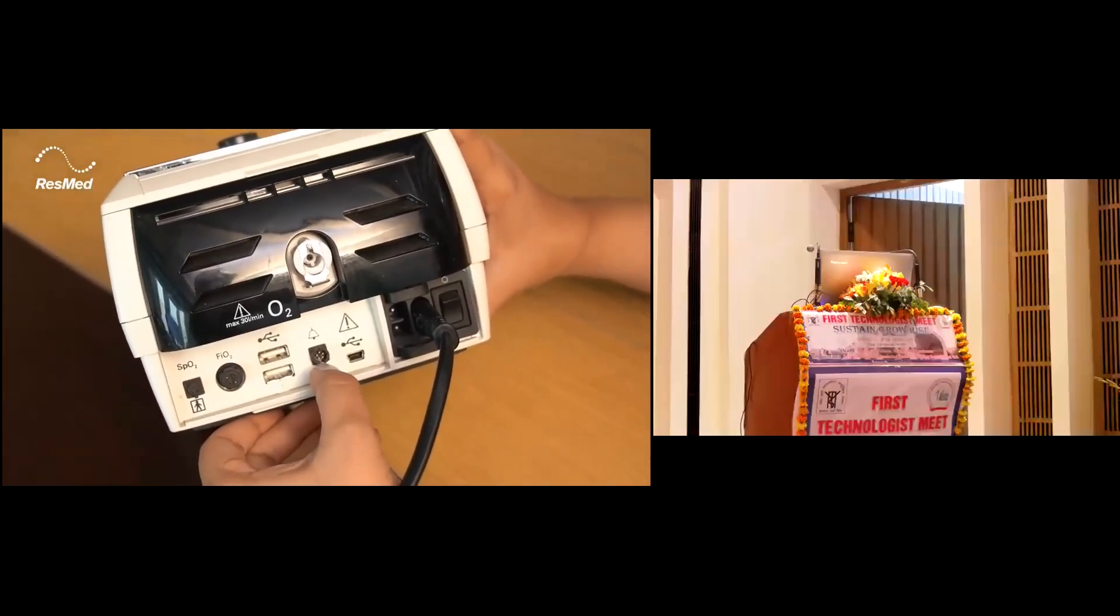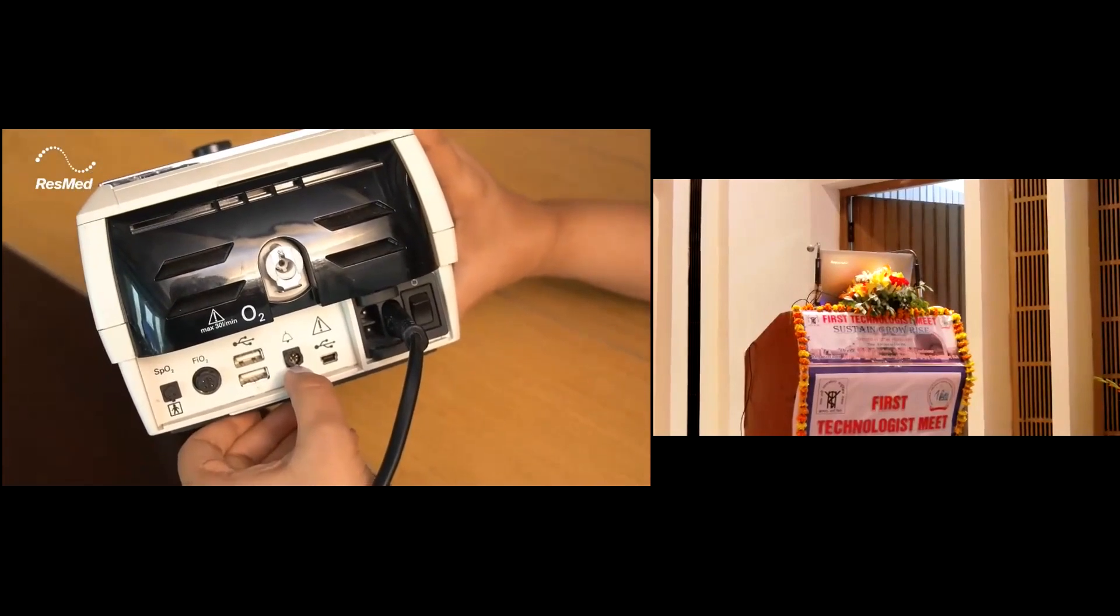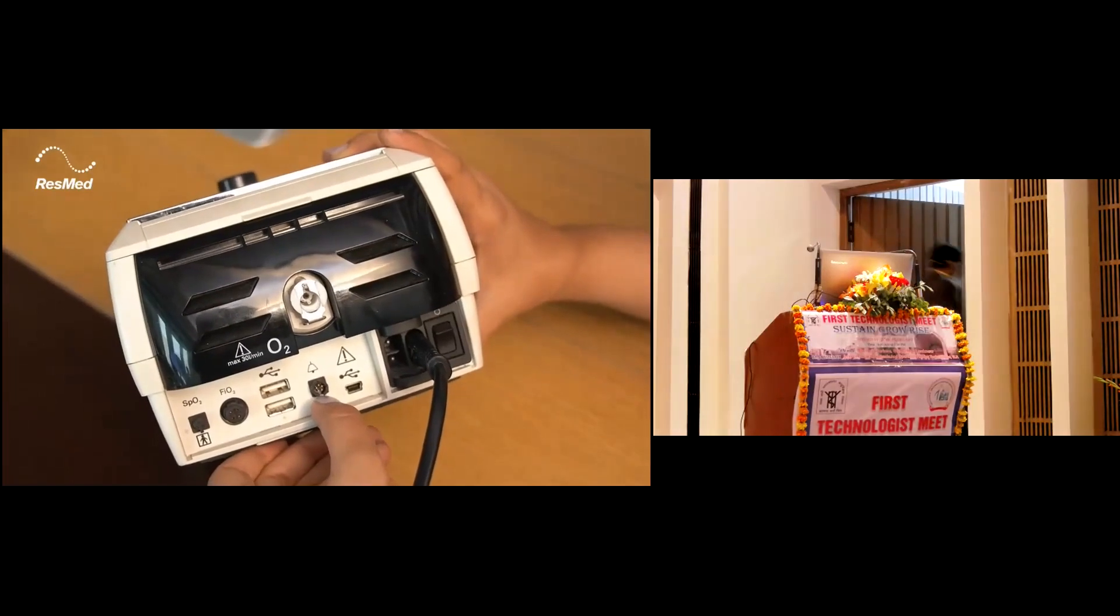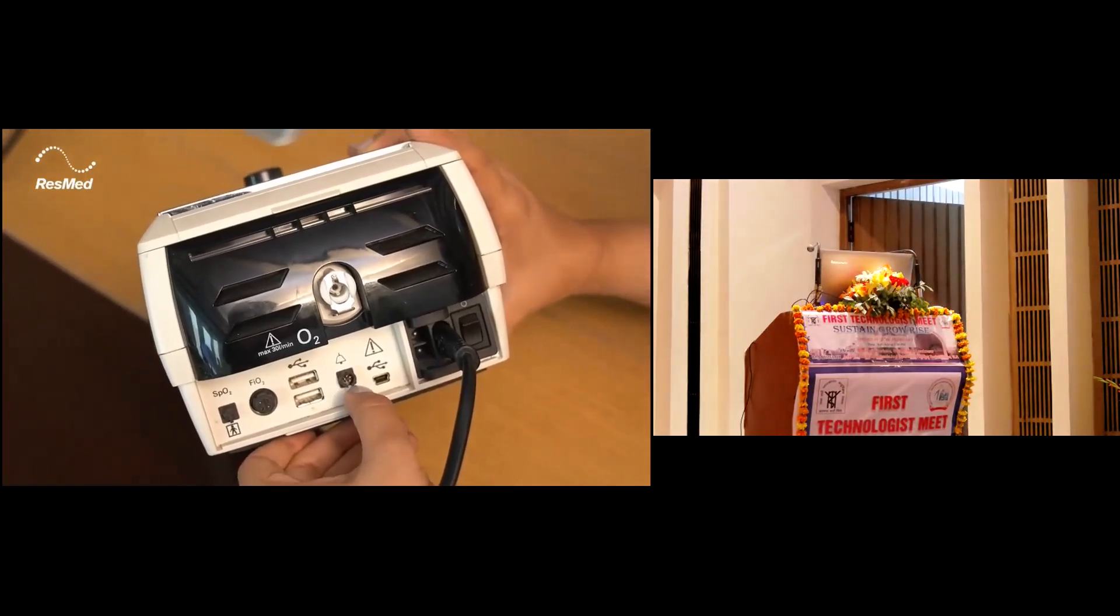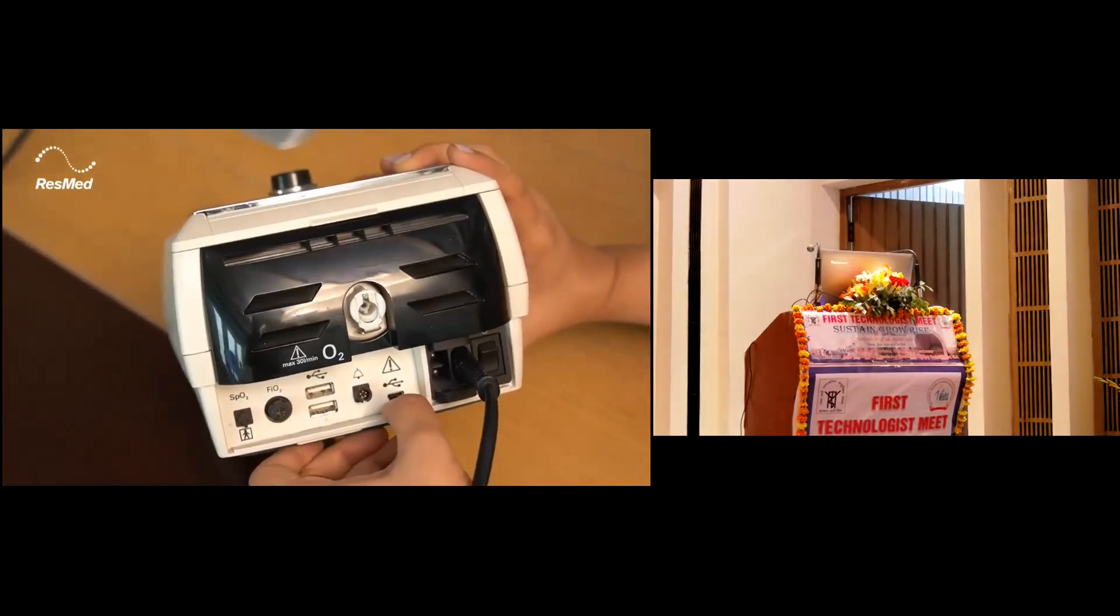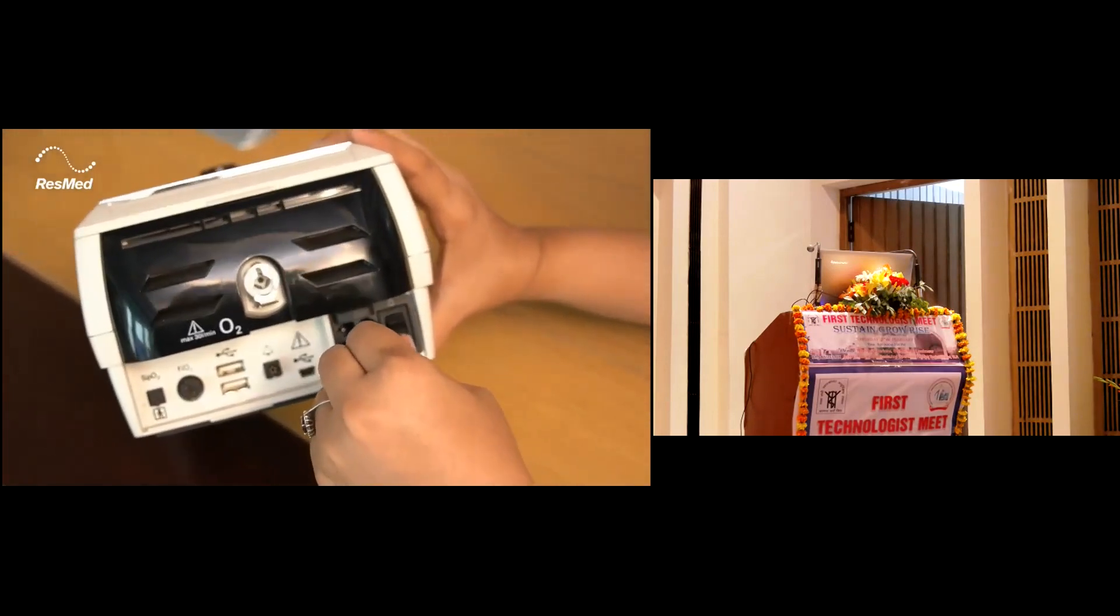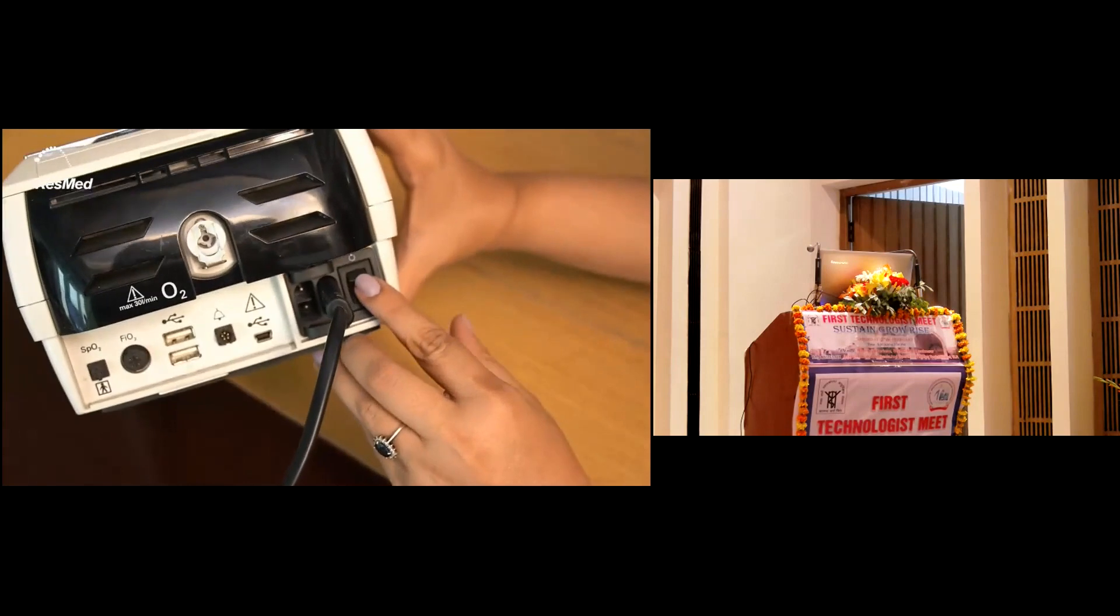We have the remote monitoring accessory, wherein a 50 meter cord can be attached to an alarm which can be heard in the next room in case the patient caregiver is present there. We have a micro USB for service use, the power inlet connection, and the on-off button for Stellar.